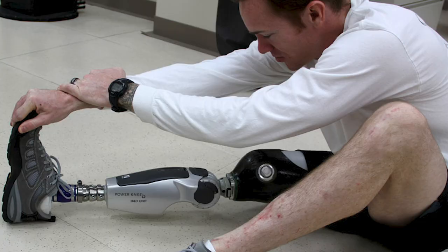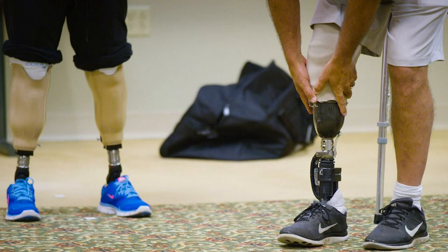The whole world stood up to this innovation because this prosthesis was better than the imported prosthesis in multiple ways. If this prosthesis costs 2,000 rupees and is better than prostheses from Germany's Ottobock or American prostheses — what is the reason? One reason is it looks like a human foot. But the top mark goes to customization — the fact that it is exactly fitted to each individual.